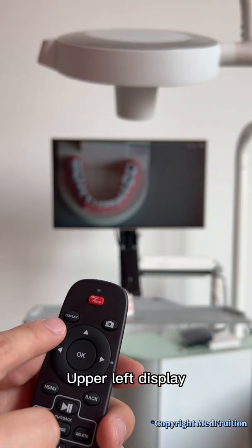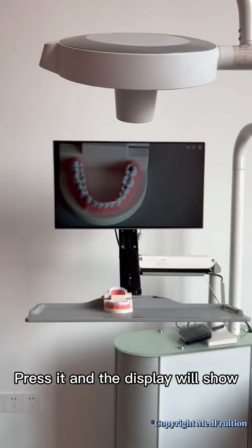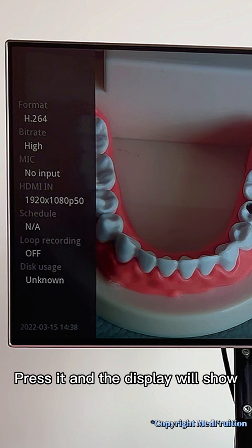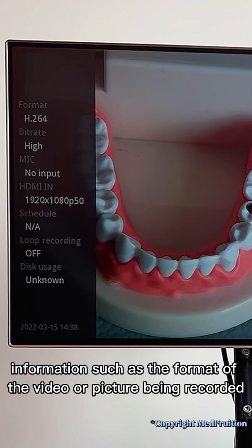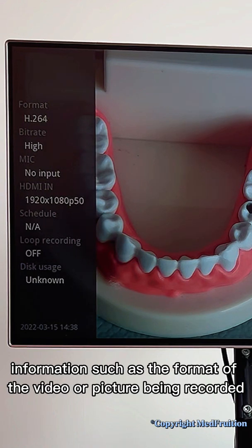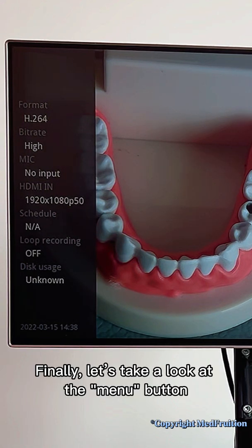Upper left display — press it and the display will show information such as the format of the video or picture being recorded.